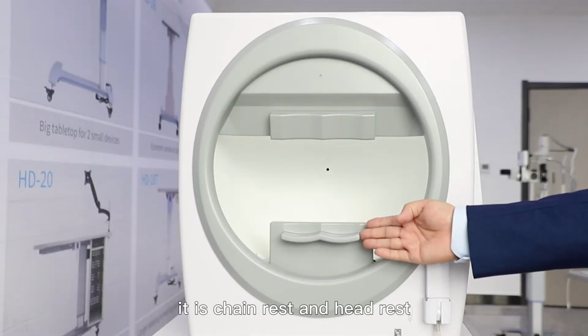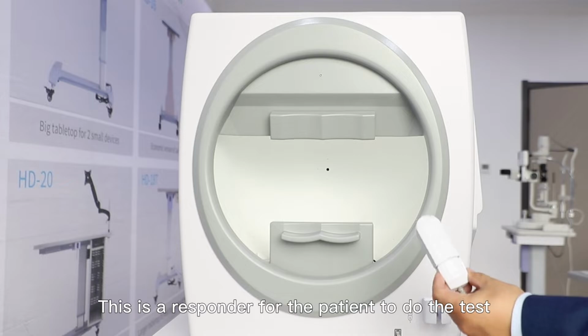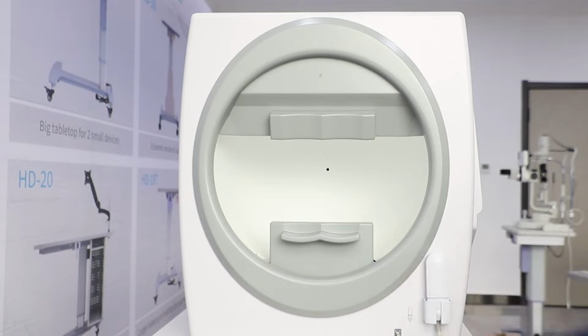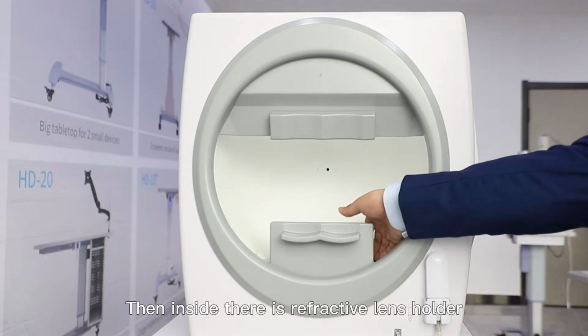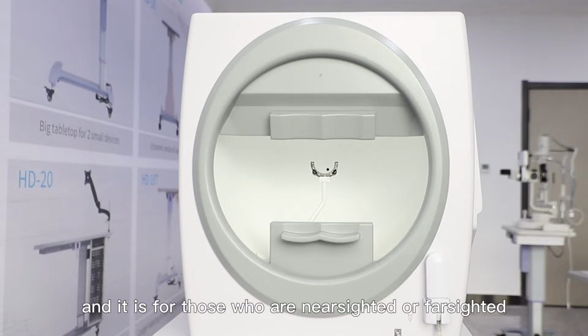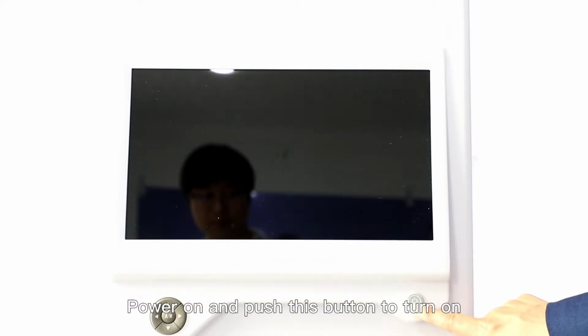And this is the power port. On this side, there is the chin rest and head rest. This is a responder for the patient to take the test, so you just push like this. Inside there is a refractive lens holder, like this, for those who are nearsighted or farsighted. Power on, and push this button to turn on.